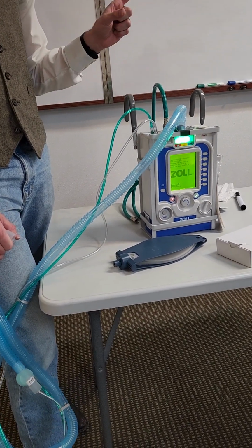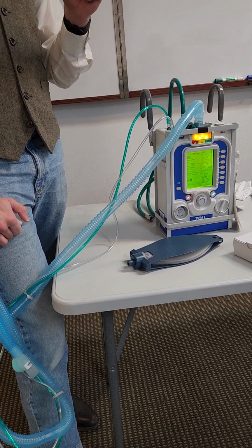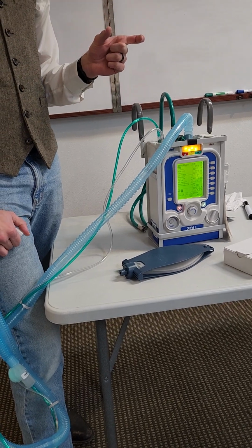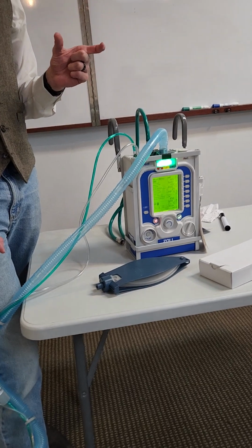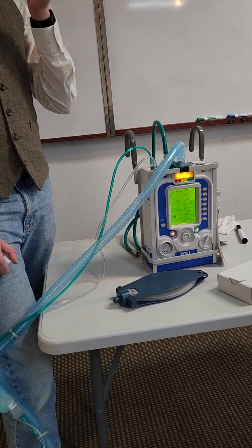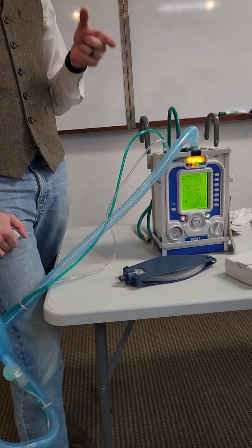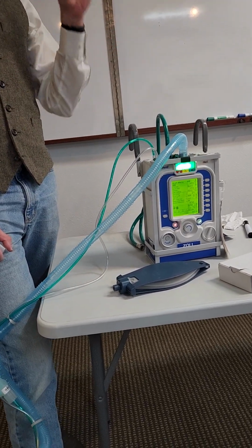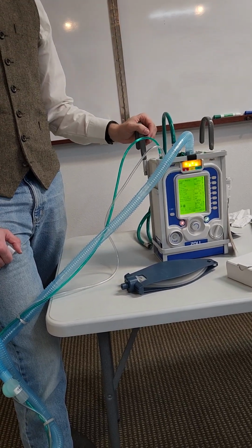One of the big things is that with this one, that startup menu is key to what you're doing. If you are going to be ventilating somebody who's intubated, sedated, then you're going to want to start it in adult and go from there. If you're ventilating somebody using a mask CPAP on either CPAP level or just BiPAP, then you're going to want to go to mask CPAP. That is the big difference. If you go to adult and then change the mode to mask CPAP, it does not work the way it is.